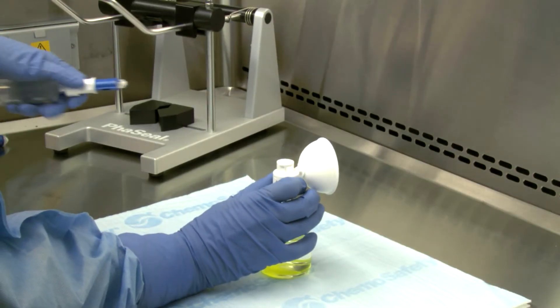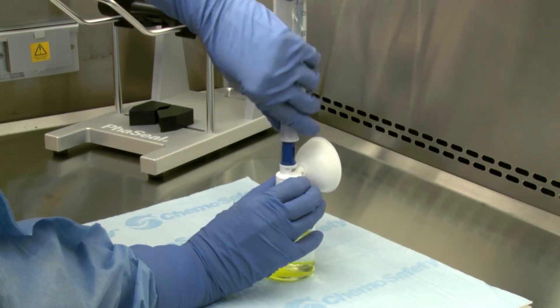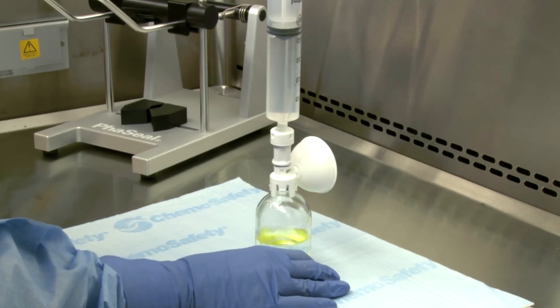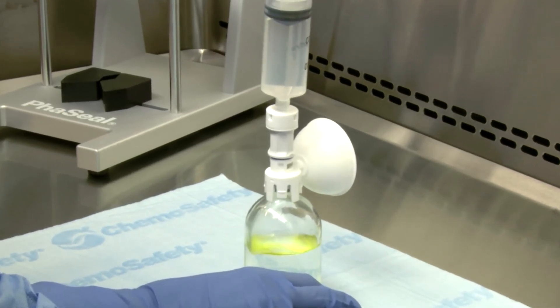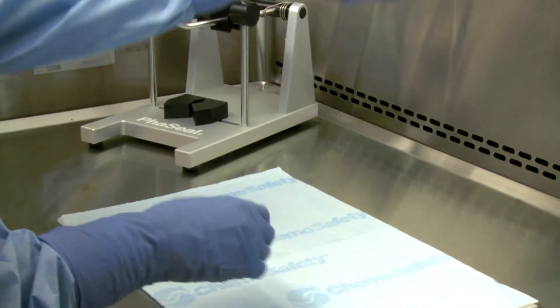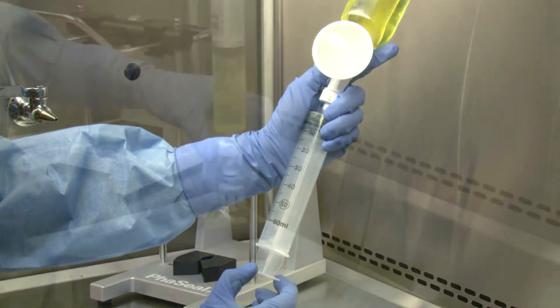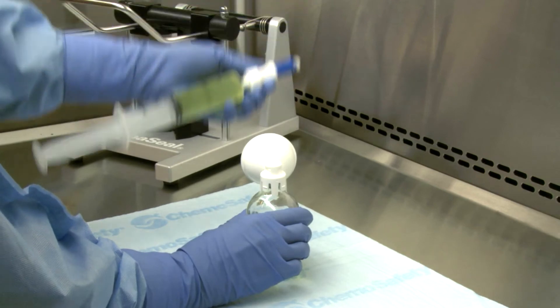Engage the second pre-assembled syringe unit onto the vial assembly using the push-turn-push technique. With the vial assembly on a flat surface, inject the second 50 mls of diluent into the vial. The expansion chamber of the protector will inflate. Reconstitute following the manufacturer's package insert. Invert the vial and aspirate the drug dose into the second syringe unit. Disengage the second syringe unit from the vial assembly using the pull-turn-pull technique.